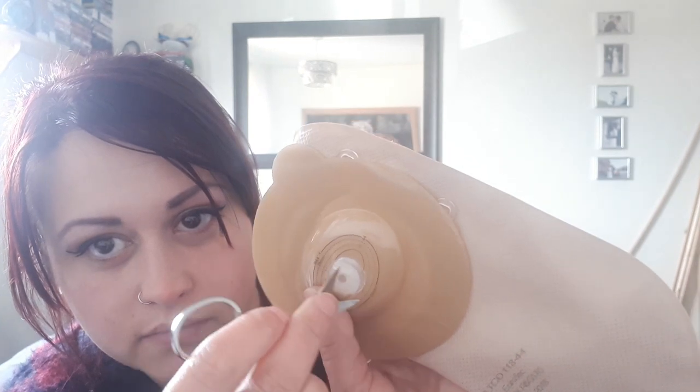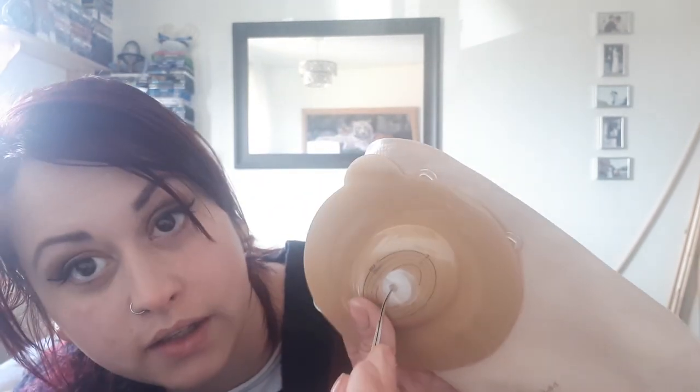Don't stab yourself — I've literally just done that again. Through the vent opening, twist the scissors back and forth to make the hole the size of the vent opening to allow air to escape easily. Wind back and forth. When I did it the first time I didn't make the hole big enough, because I found it very hard for it to pop open.